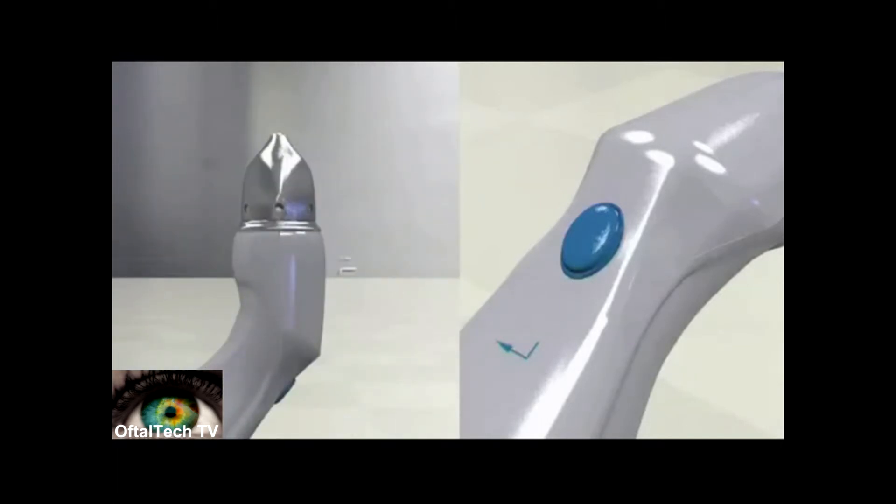The unit will then chirp and display probe down. The last step in the calibration requires the user to hold the unit so that the transducer is pointed directly towards the floor. Press the action button.